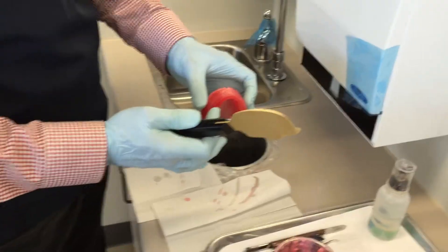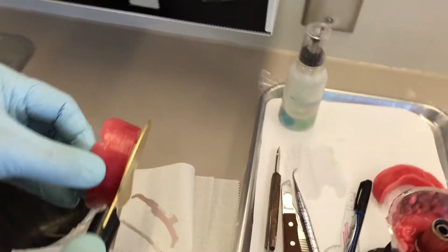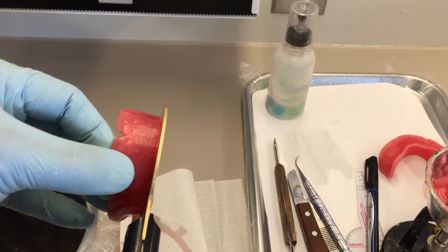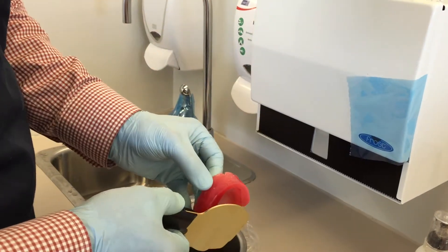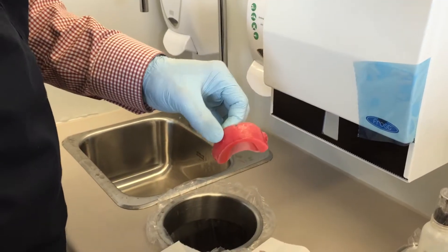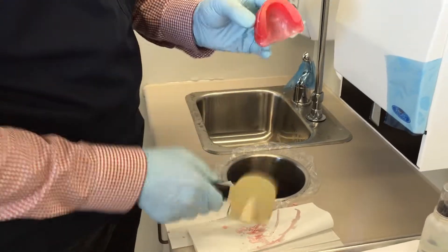I'm going to reduce primarily the right side, so not a lot of heat here. You want to do it in little increments so you're not over-melting anything. I'll introduce a little more heat on my rim former and very gently start on that side. You can see I'm starting to melt it here, making my way across. Once again, a very flat surface. Once I establish this plane of occlusion I can go back and change it, so it's very imperative that we get this correct.